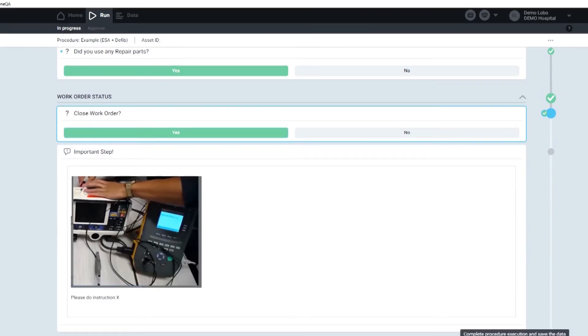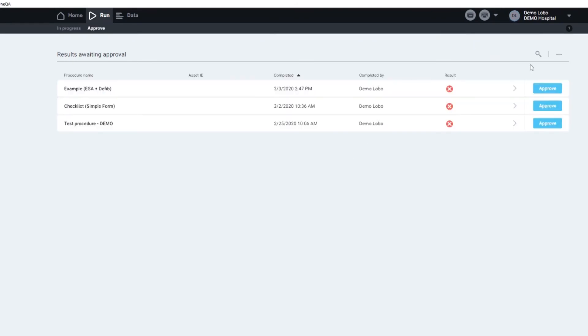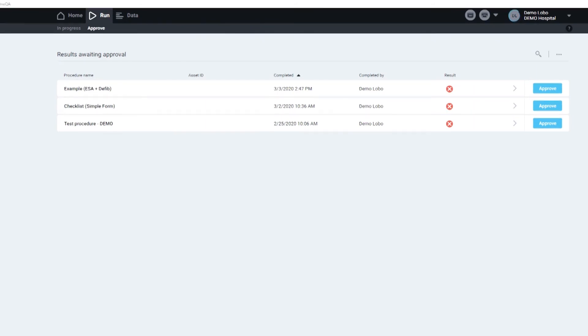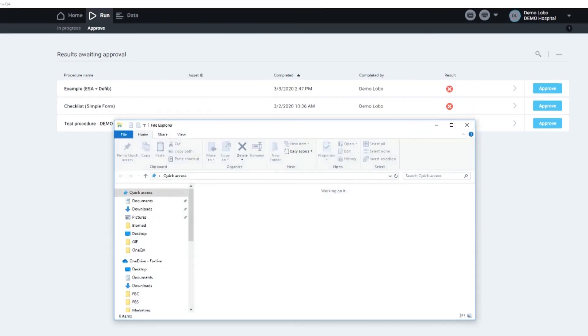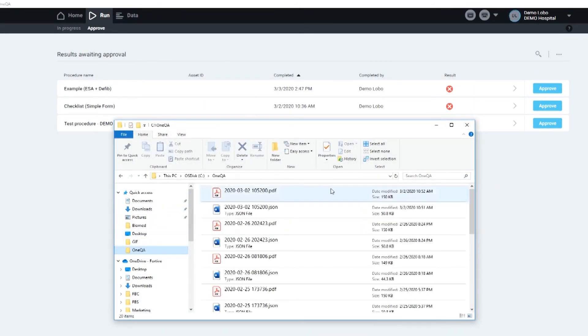And now you will see in just a few seconds, your report will be completed. If I'm interested in approving it, which I will, all I have to do is either connect it to my CMMS, or I will find the test results over here that have just been completed.